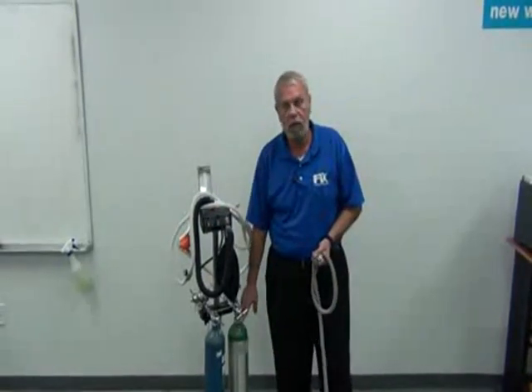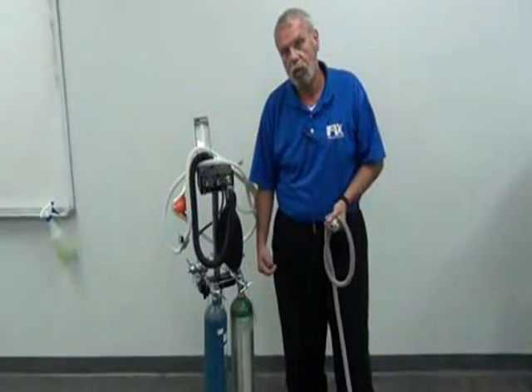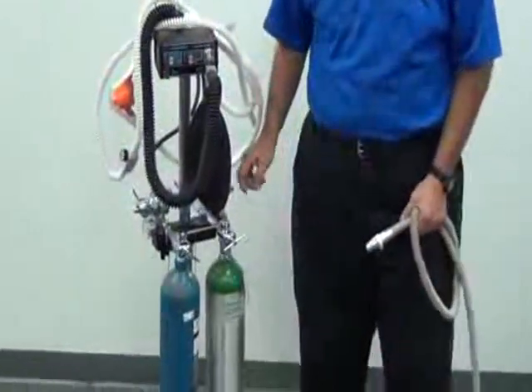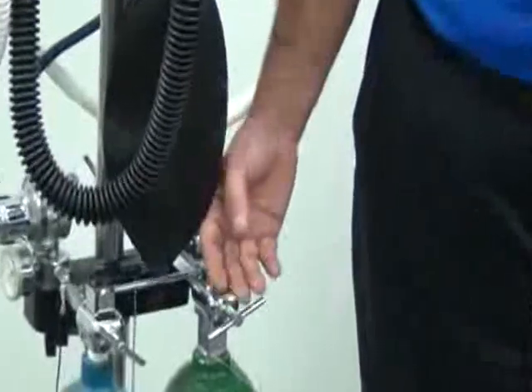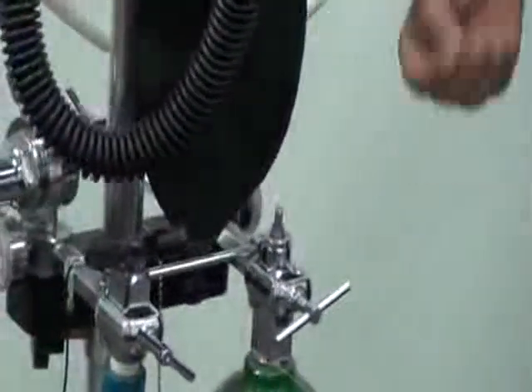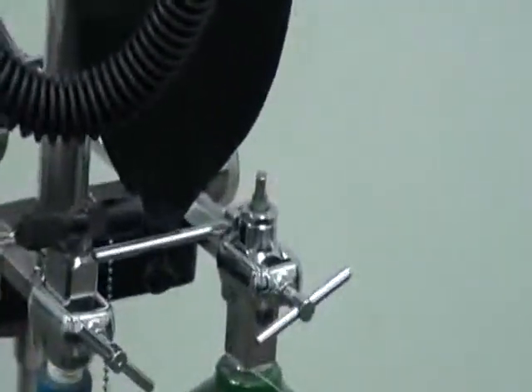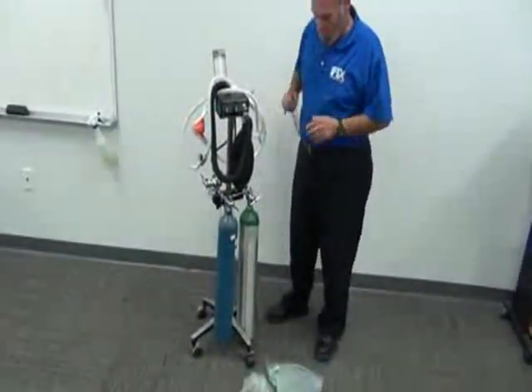These smaller tanks are kind of like scuba tanks, a little smaller. They're called E-tanks, E for Edward, E-tanks. Okay? As you get your tanks, they go on a tank yoke for obvious reasons. The tank yoke acts as a suspensory for the tanks and holds the tanks that the gas is being drawn out of, the gas and the oxygen. It also makes the system highly mobile by holding the tanks up off the ground.